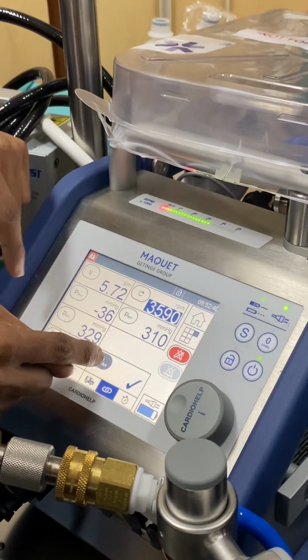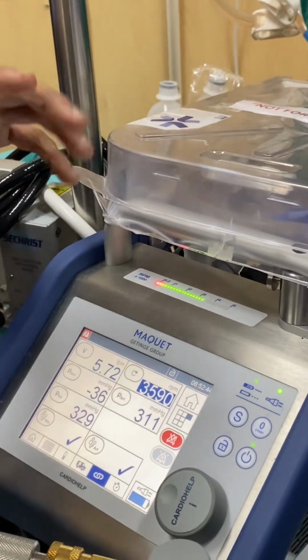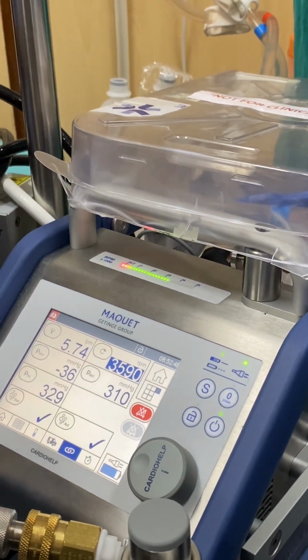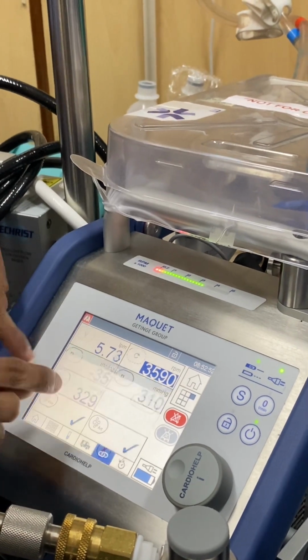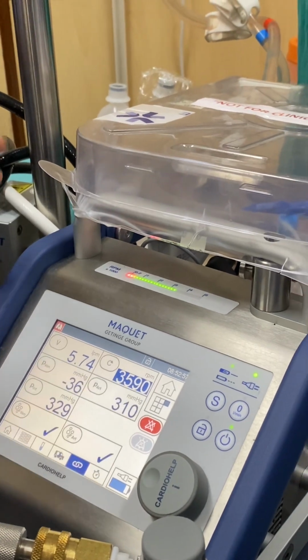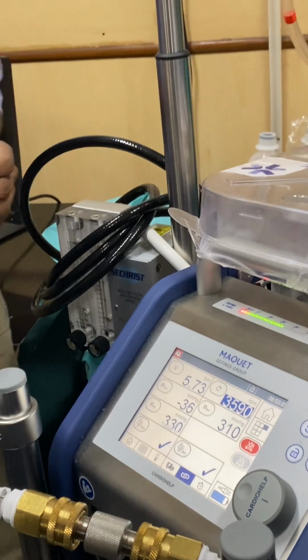In the same way, there is also intervention for arterial and venous bubbles. If an arterial bubble is detected, the machine will stop to prevent the air going into the patient. If a venous bubble is detected and the intervention is on, the machine will go into zero flow mode. Now I will say what it is.